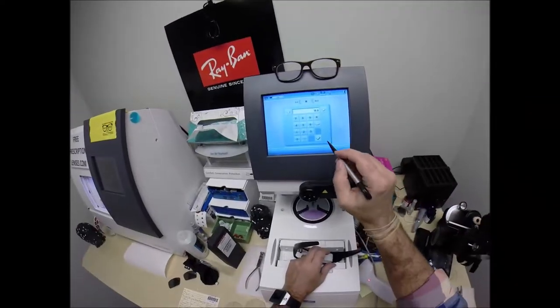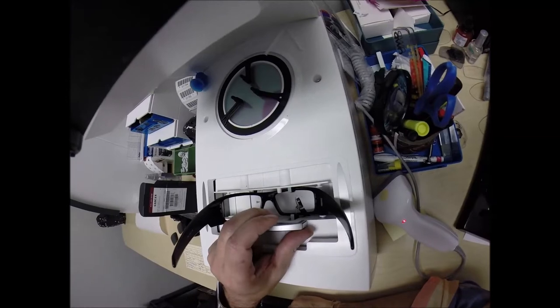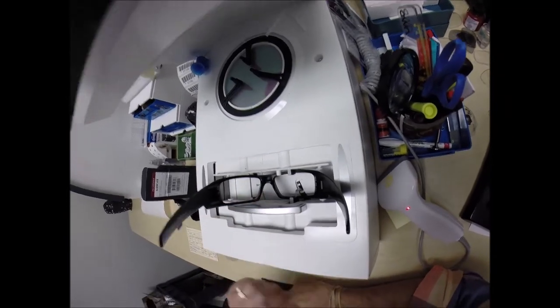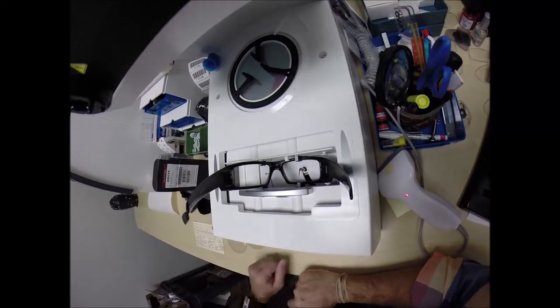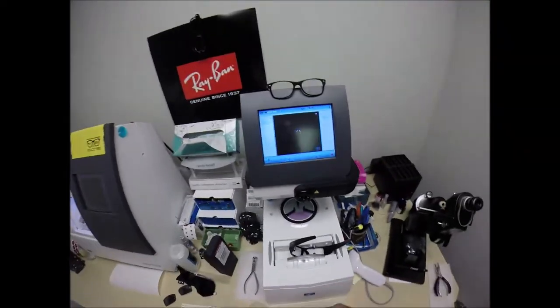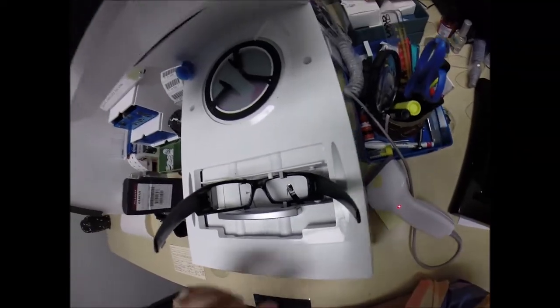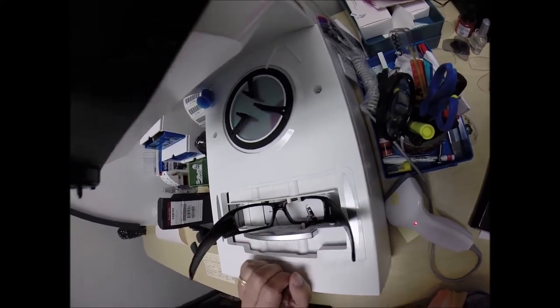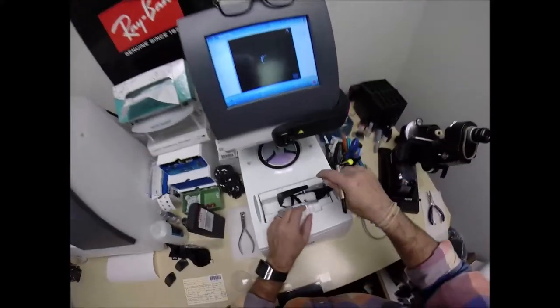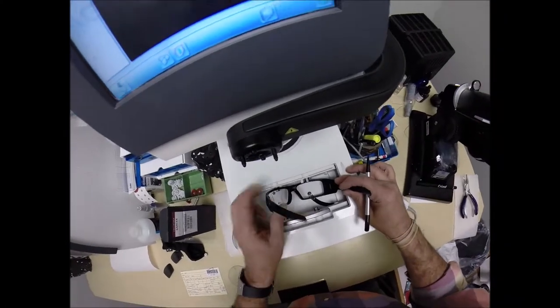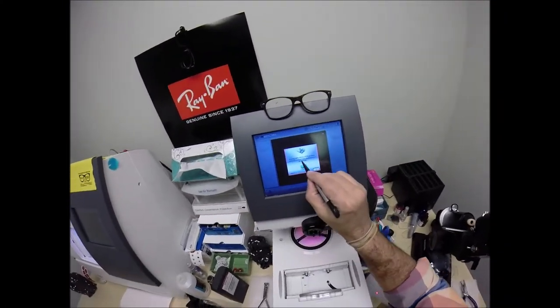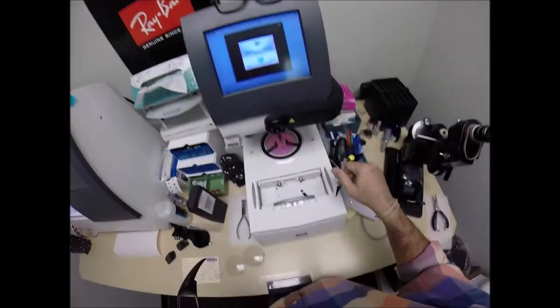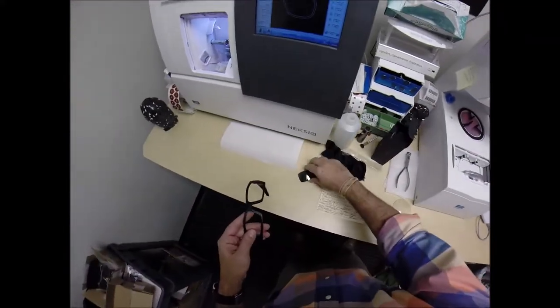Some of these high-wrapped frames are tricky. I am more stubborn. It freezes for a moment. There we go. Nope, didn't like that either. Let's go to plan B. Tracing table defect. If the problem persists, contact your maintenance technician.